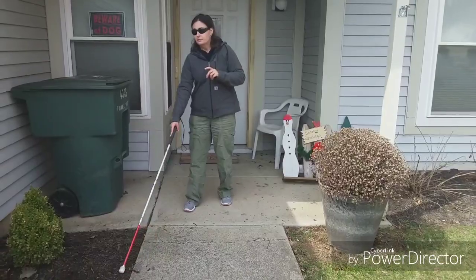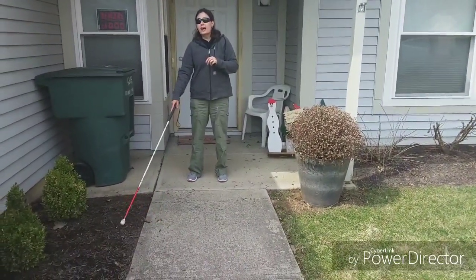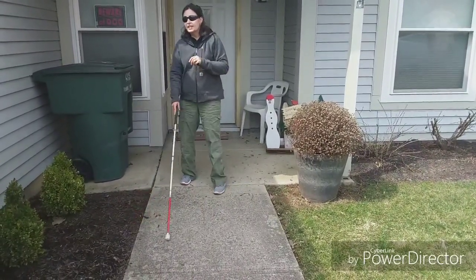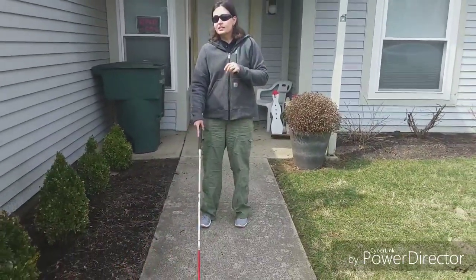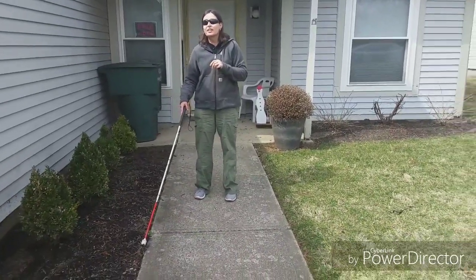So I'll walk out to the truck for them. What I do is my roller tip finds where the grass and the sidewalk is on both sides, and I stay in the middle. And I use it — you're moving pretty quick! Well, I've been practicing for 12 years.